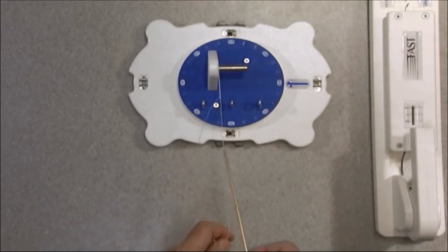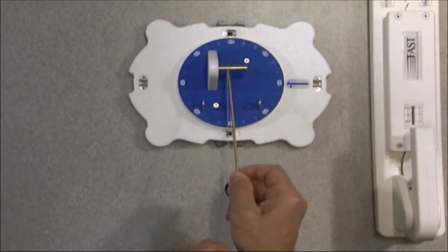And I'm going to slide down. And if you were in the OR and simply did that and didn't back it up with any hitches, this is what would happen.